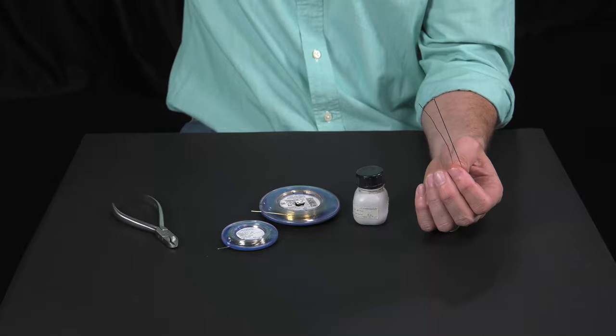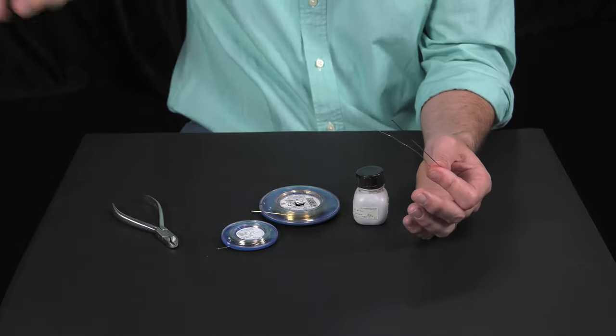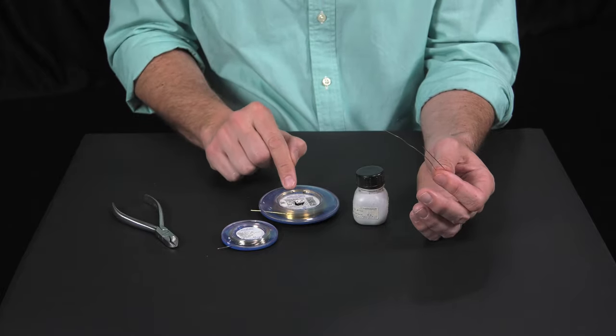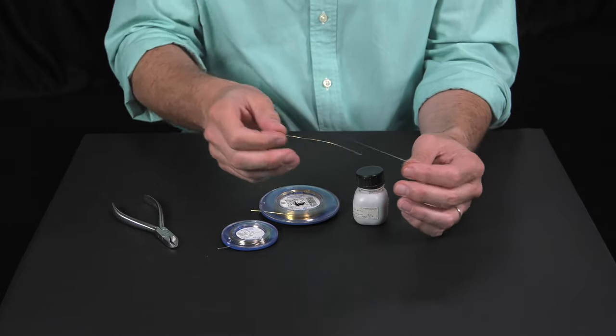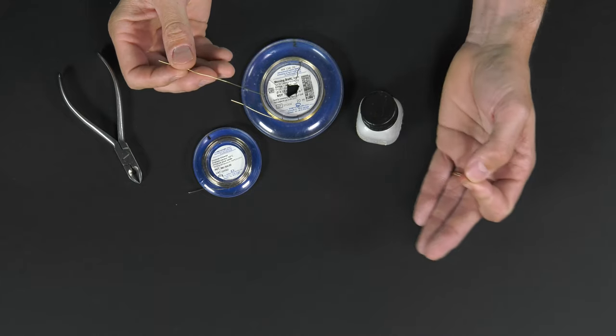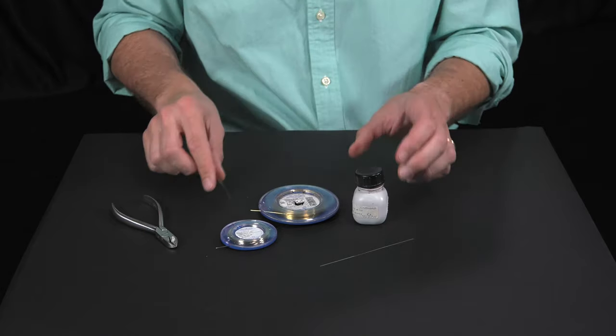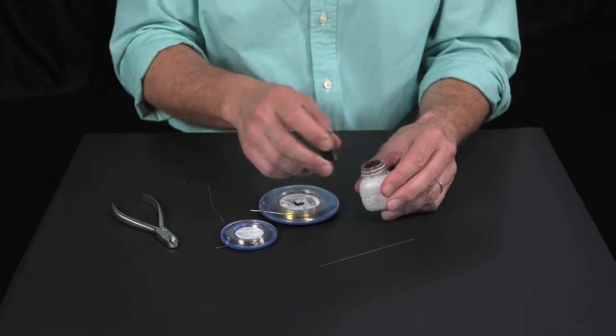To be able to solder ganchos, we need brass wire, at least 0.6mm. Thinner wires won't work because they would be destroyed with the heat. Silver solder, flux, or antioxidant.